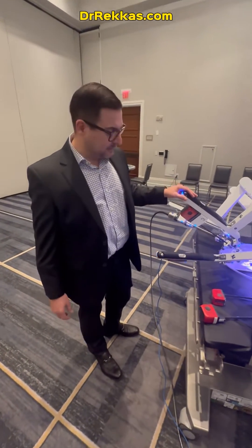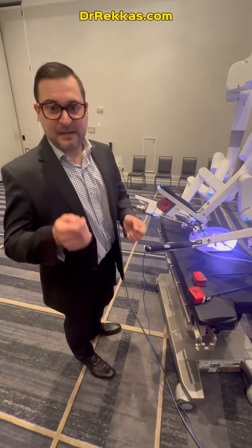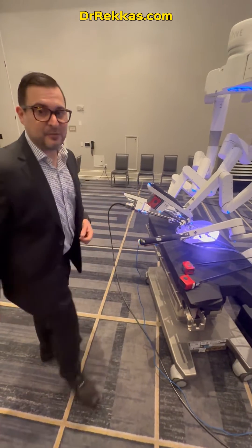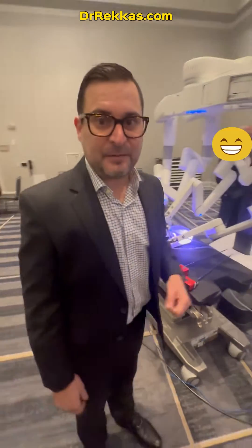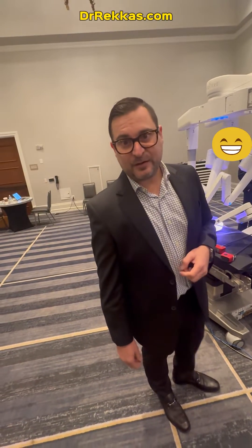Fundamentally, the patient cart is very similar, just updated. It has advanced sensors to detect position and an ability to sense feedback. Overall, it's a lot of improvements. We're very happy, and hopefully we're going to be one of the early developers bringing it to our community soon.